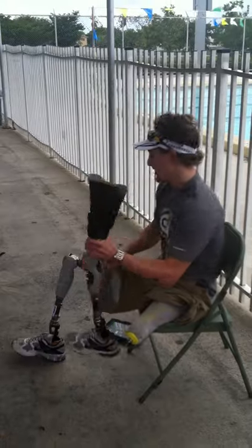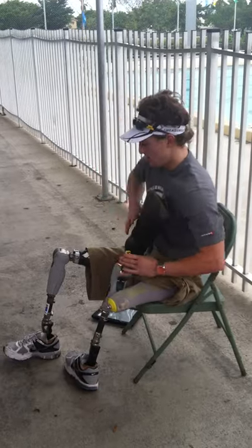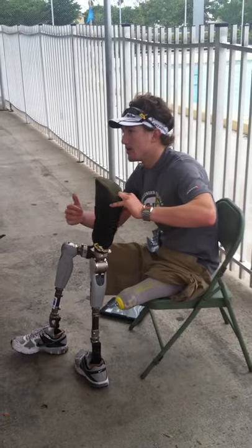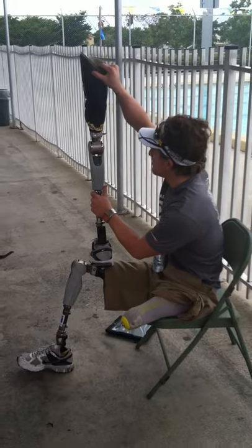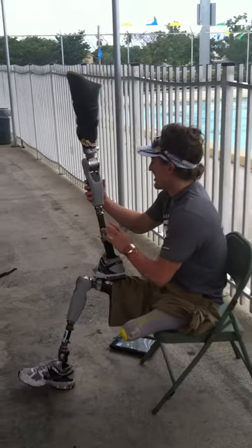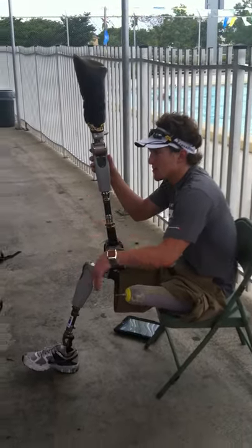What they do for me — imagine a normal mechanical knee made out of metal: it has no resistance. A normal mechanical knee will just lock when in the standing position to give you support so you don't fall, and when it bends, it just bends with no resistance. What these computerized knees do is give me a knee with muscles. They bend slowly when I'm walking down or up the stairs — right now I'm really working at it. They give me a lot of resistance. And another thing they do is adapt to the way I walk, so if I'm trying to walk faster and push my leg a little faster, it will sense that and swing a little bit faster.